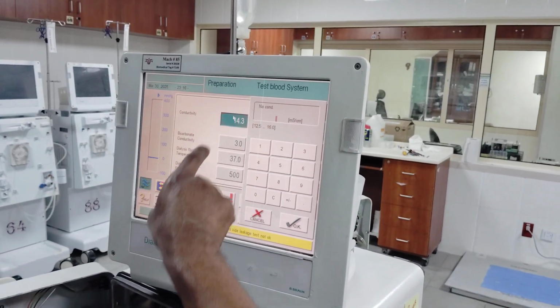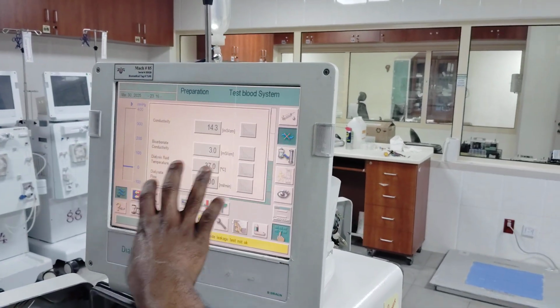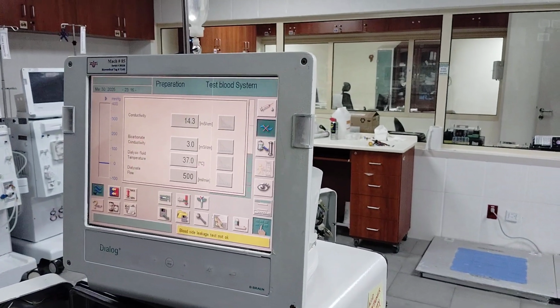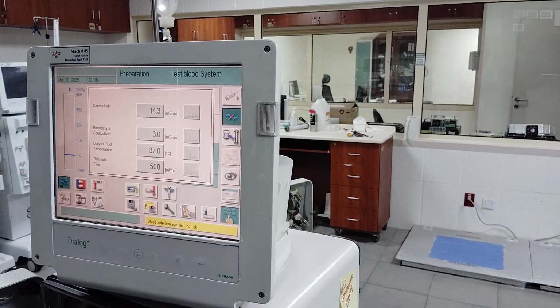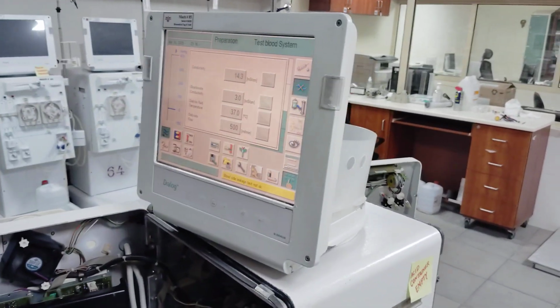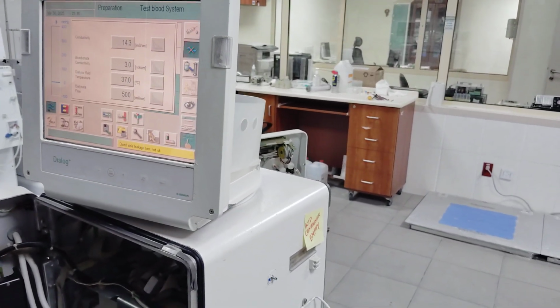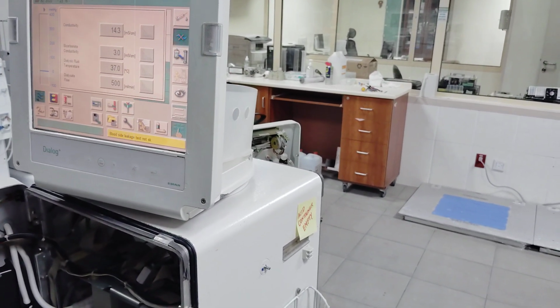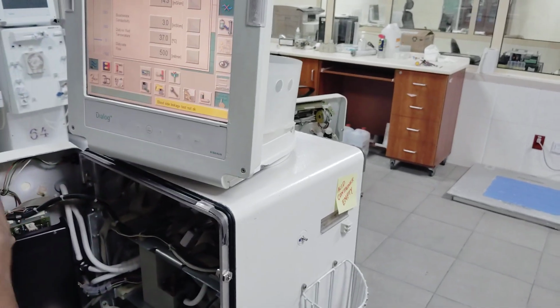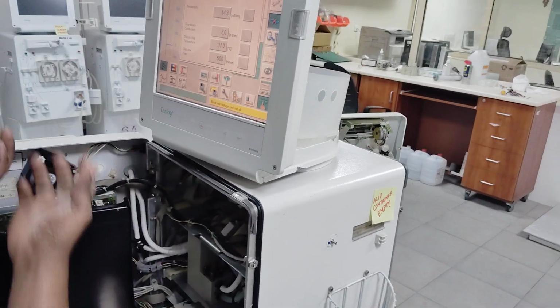This one is not the blood of the patient. This is our concentration, like sodium, bicarbonate, calcium, magnesium, potassium. These things are contained in it, so it will add them, because you are removing these things from the blood. When filtration is going on, these particles are removed from the filter. So that is how the dialysis is going on.